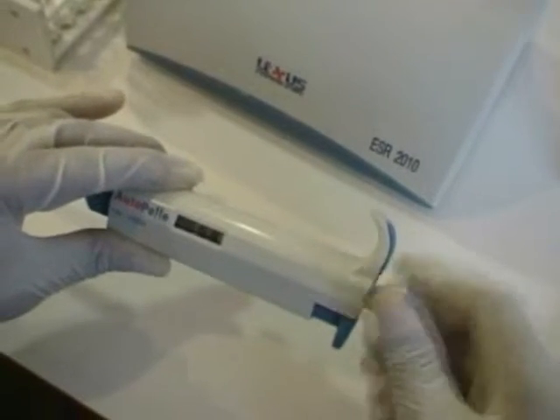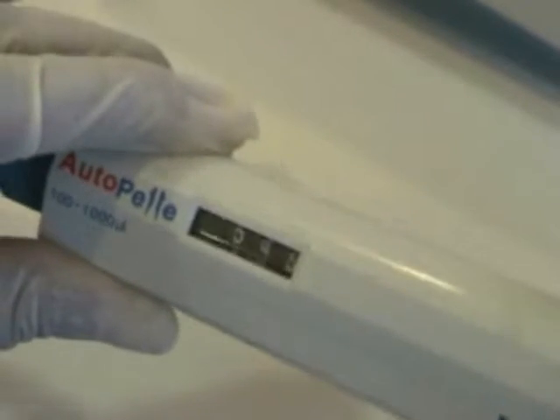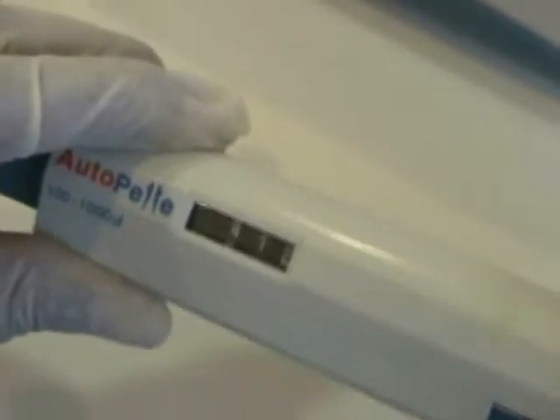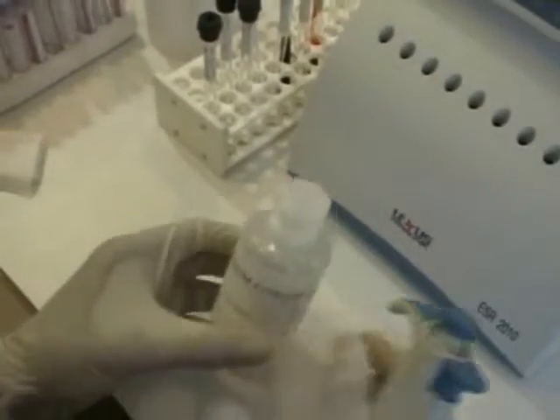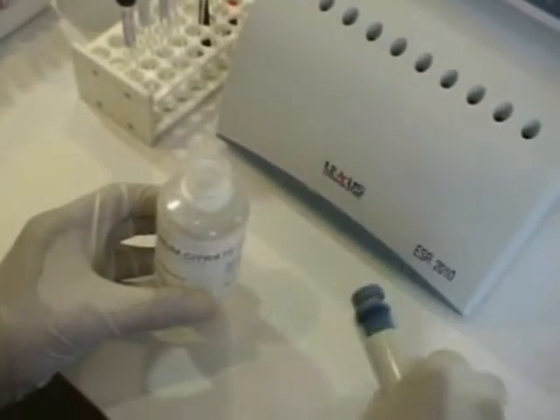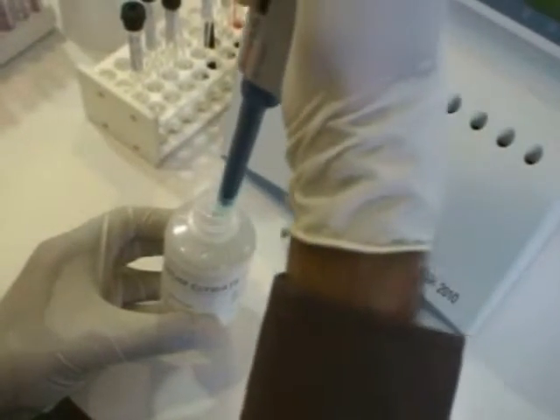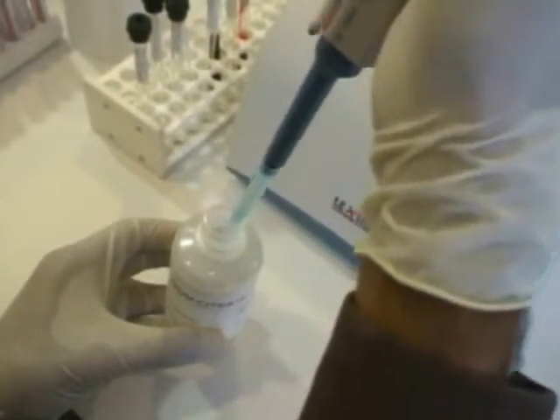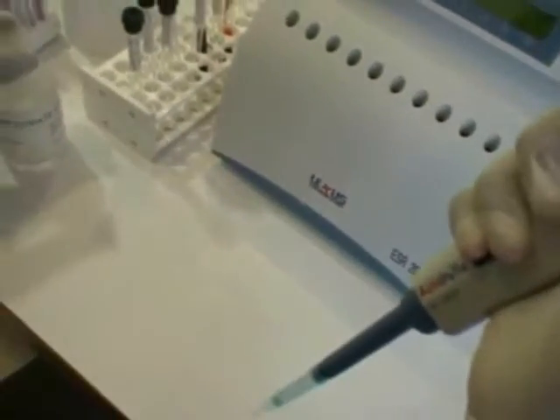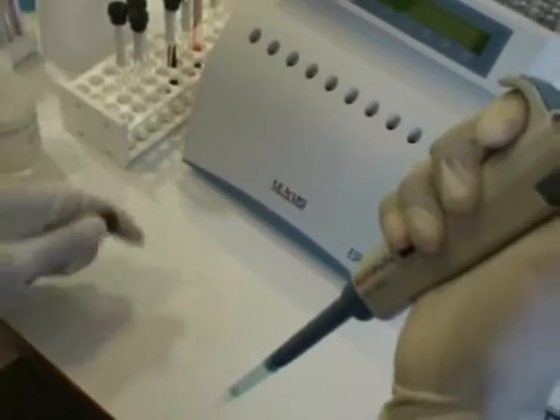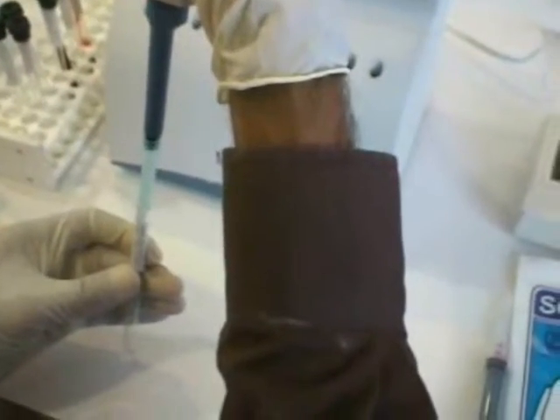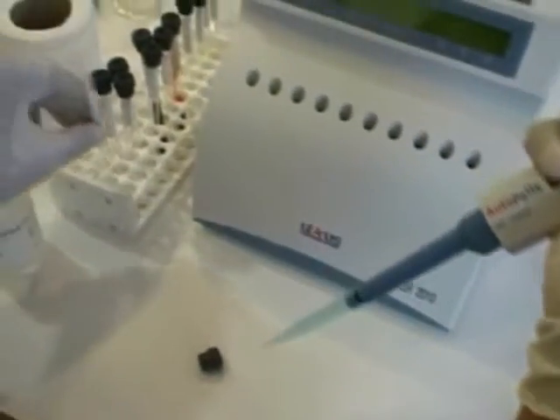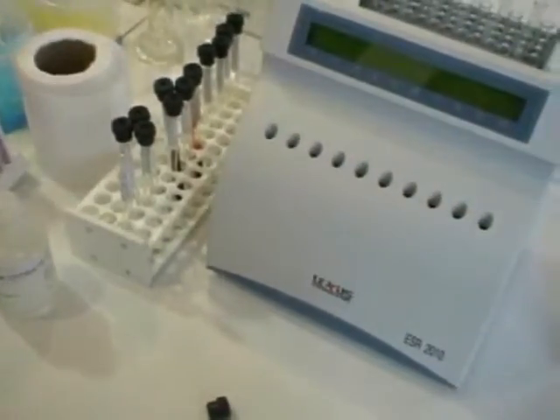Set the volume to 320 µL on your 100 to 1000 µL variable volume micropipet. Dispense 320 µL of ready-to-use 3.8% sodium citrate to the labeled ESR tube. You can also use vacuum ESR tubes which are prefilled with 320 µL of 3.8% sodium citrate. These tubes are available from companies like BD and Greiner.